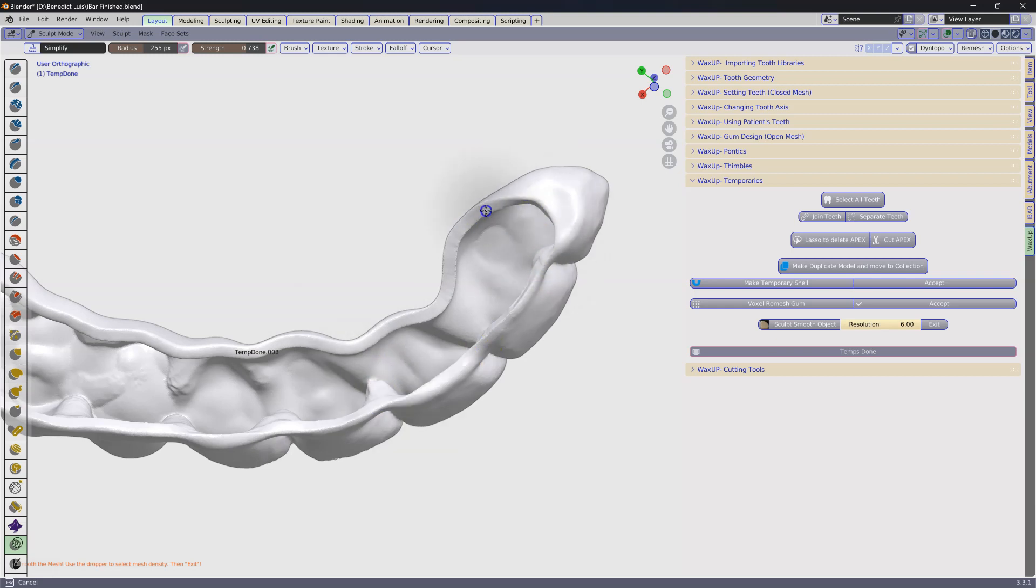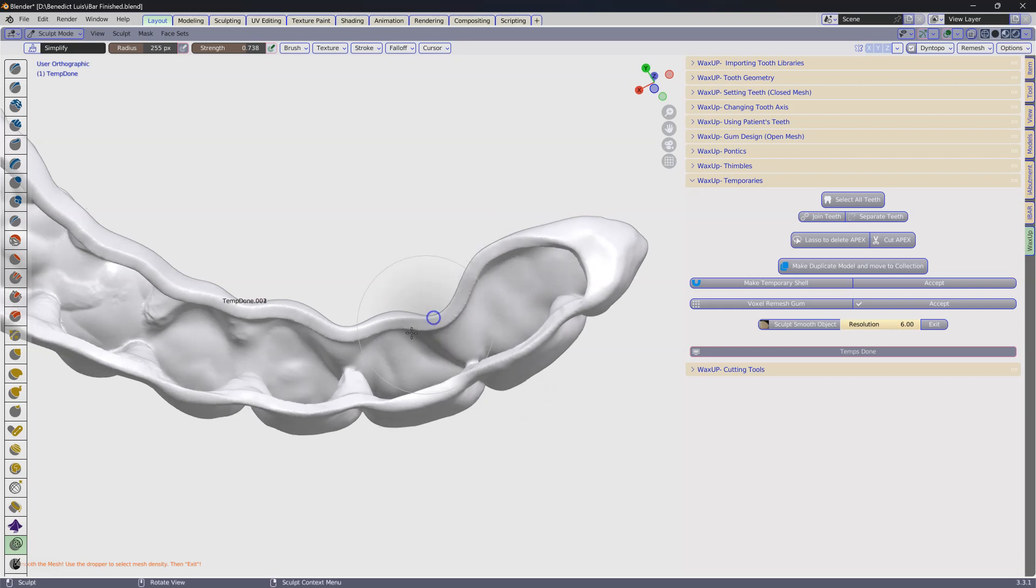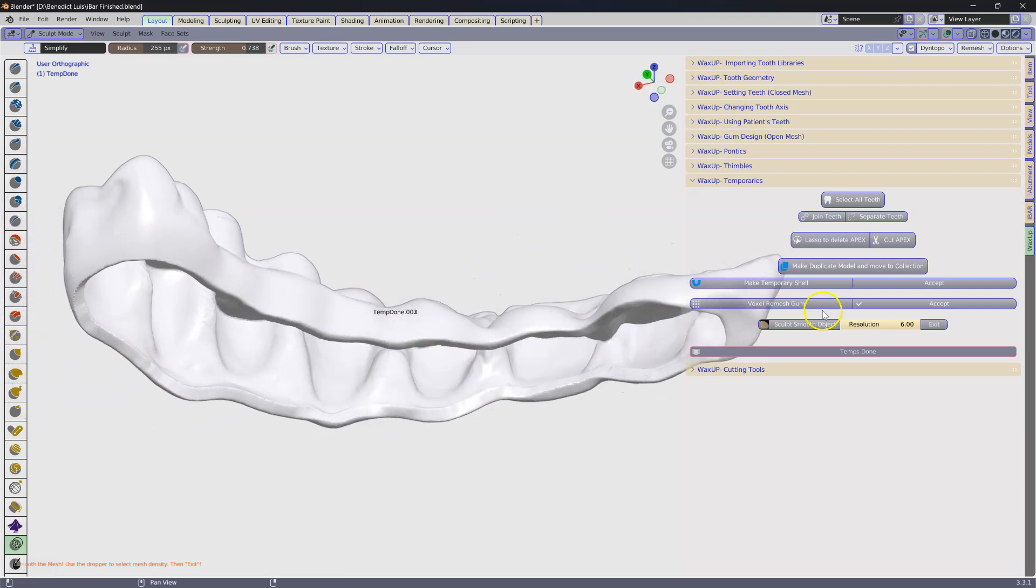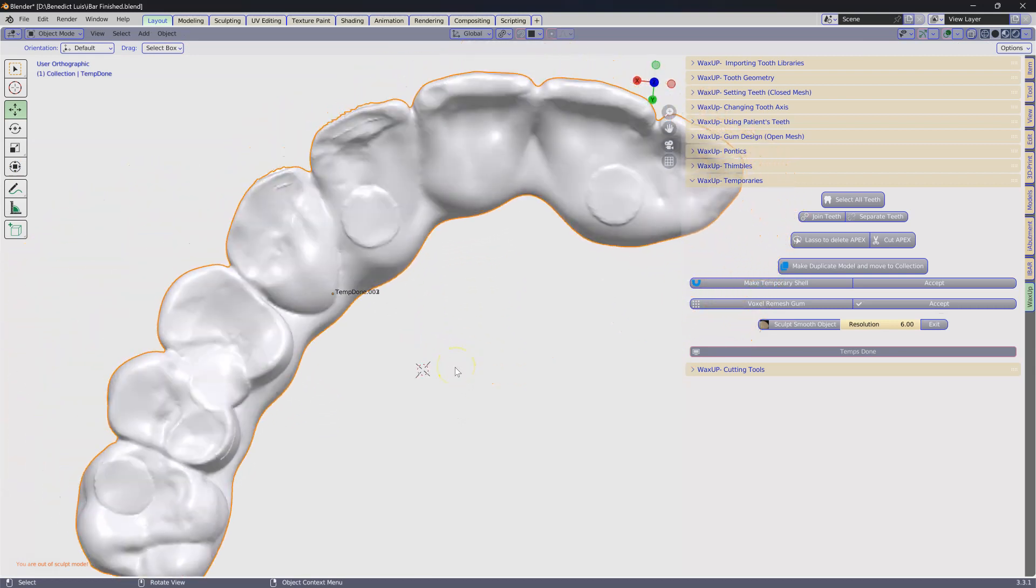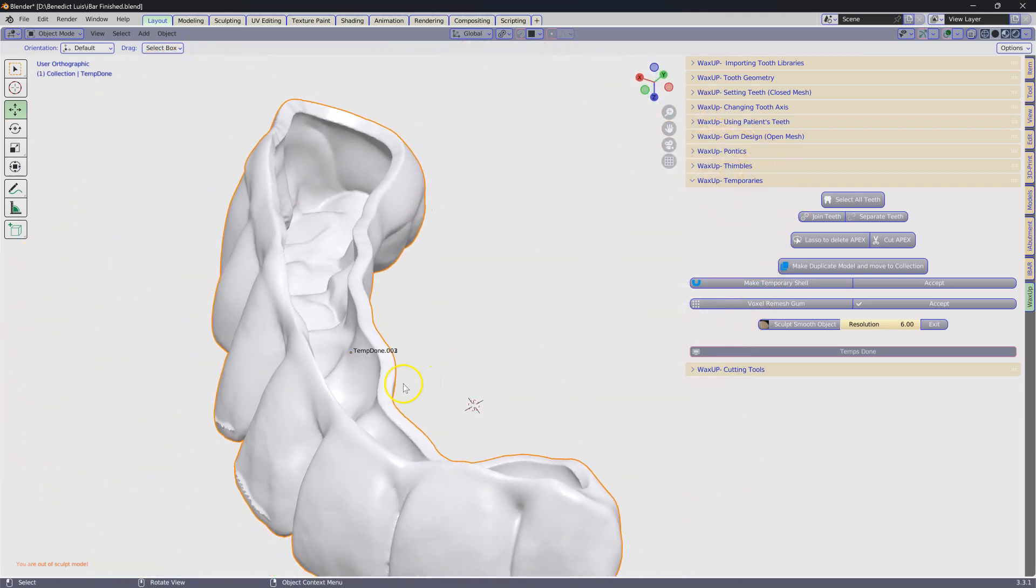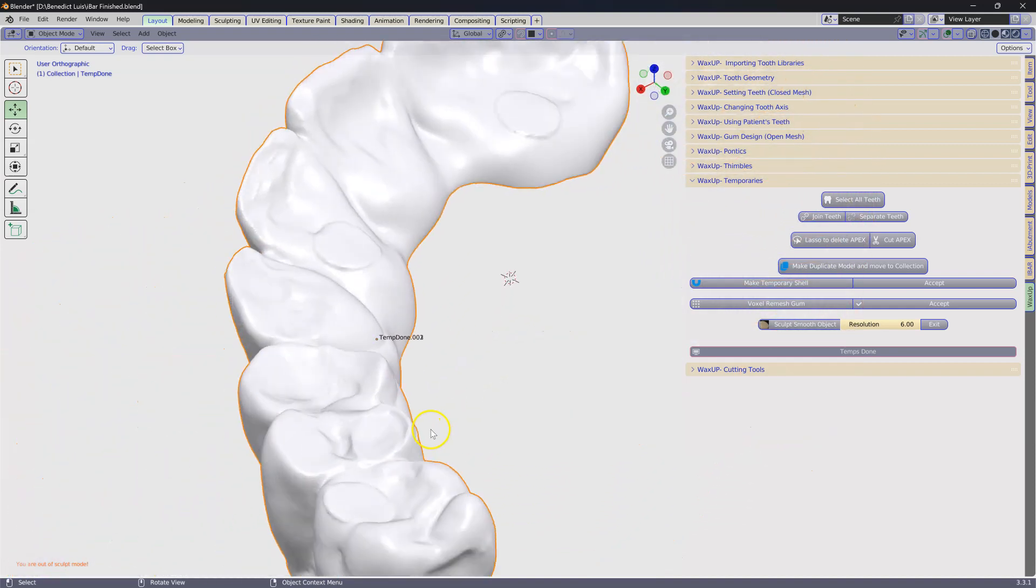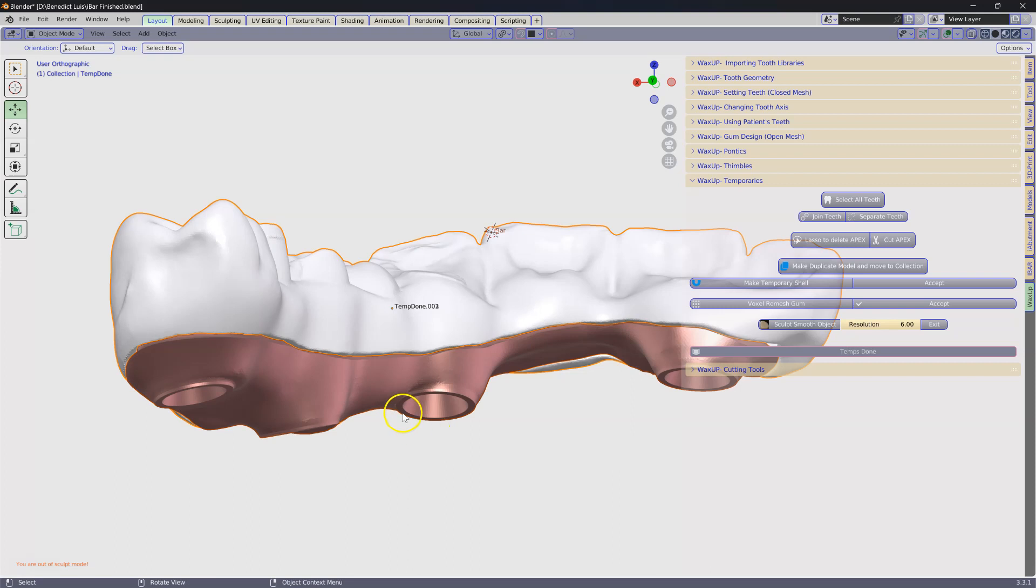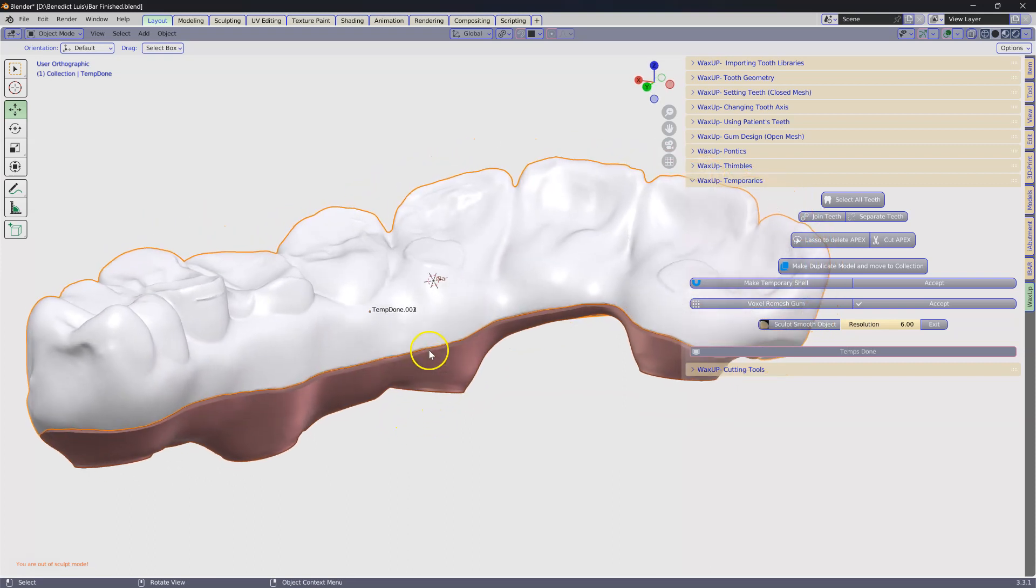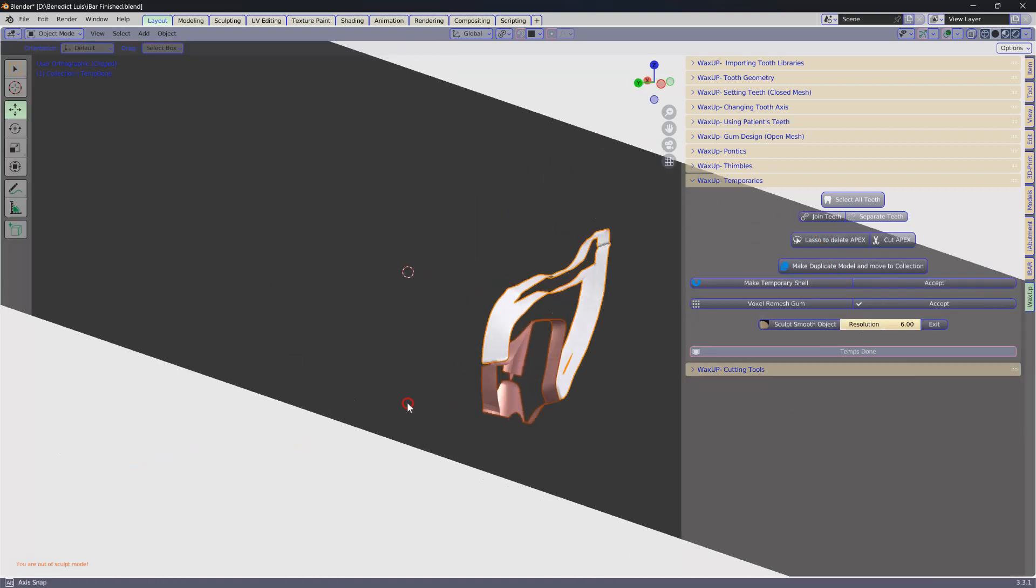And that's about it. Then send it to your printer and you've got yourself an eggshell. I think they call it a temporary hybrid. Here you can still smooth it a little bit. So let's just have a look to see our hybrid structure. I'm going to just go alt B to see the inside of it.